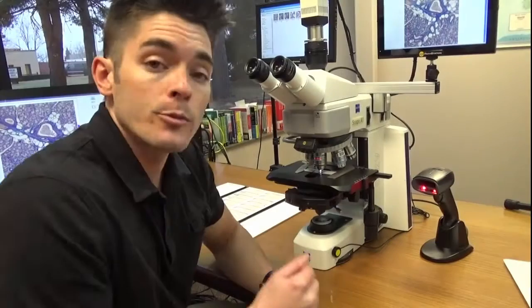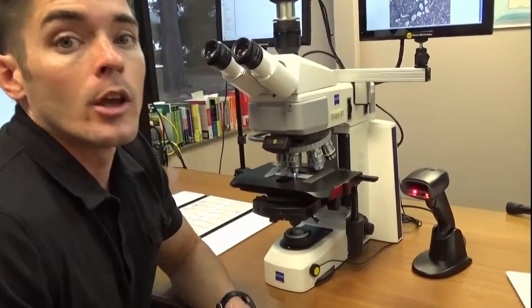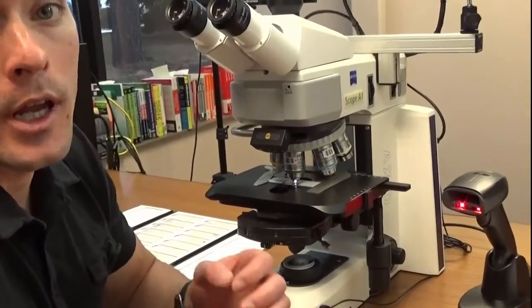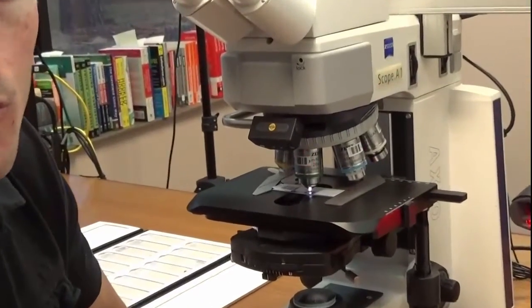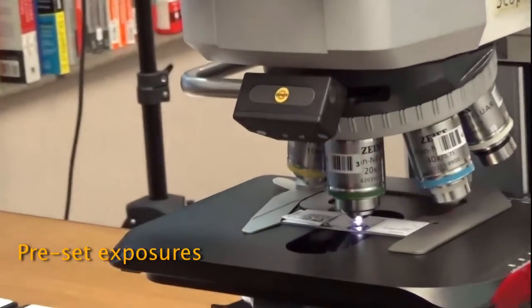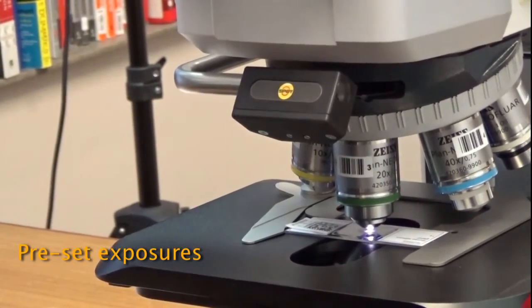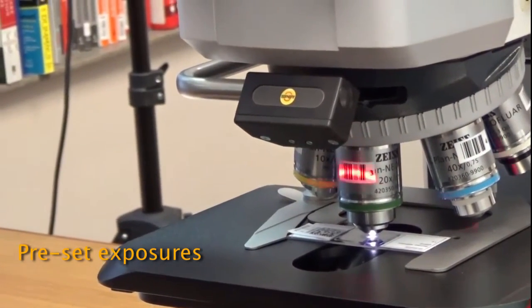The MagMinder device has three main features. By continually tracking what objective is in use, we can automatically apply preset camera exposures, which eliminates otherwise wasted time waiting for the camera to re-expose when changing objectives.